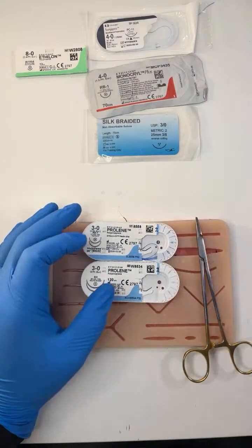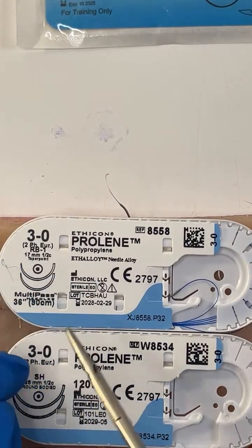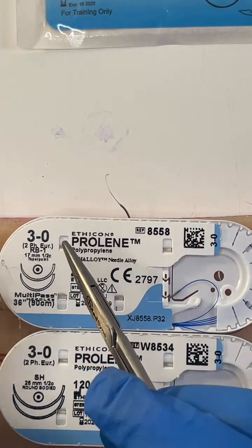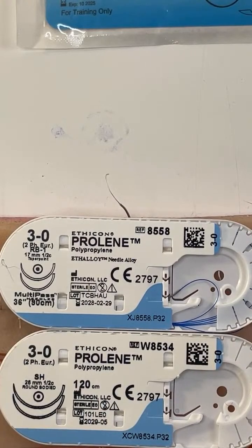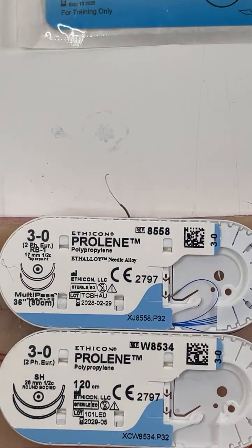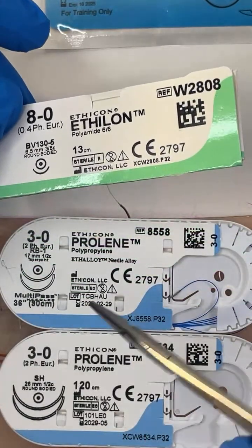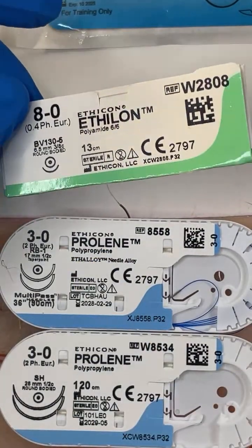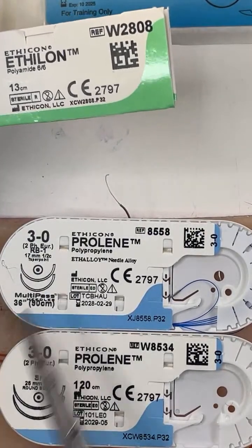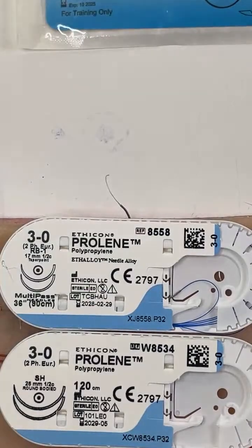Then we look at the number. These sutures are the same — they're both Prolene 3-0. The number refers to the strength required to break the stitch. The bigger the number, the less strength required to break it. The smaller the number — heading towards 2-0 and 1 — the more strength required to break it. So 1 requires more strength than 3-0, and 8-0 requires less strength than 3-0. This is a microsuture; this is a normal suture.